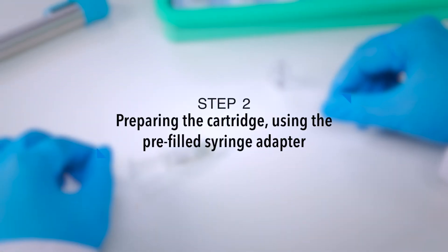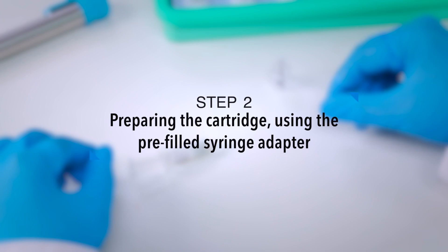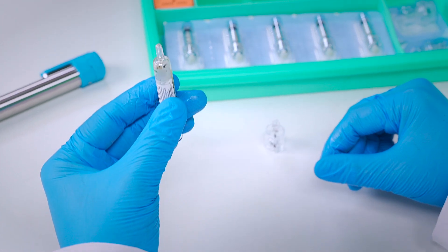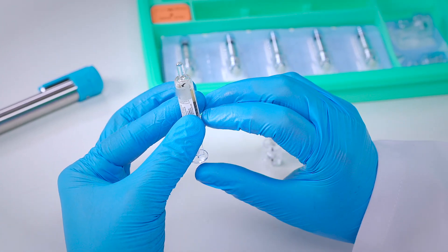Step 2: Preparing the cartridge using the pre-filled syringe adapter. Take the medicinal pre-filled syringe. Open the cap and remove any air bubbles present.